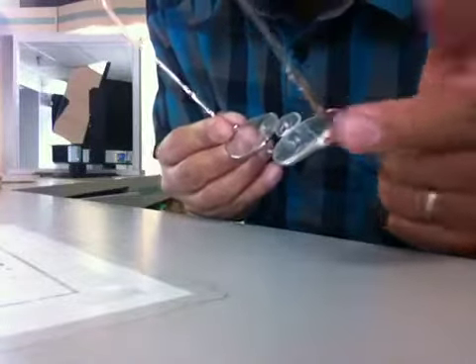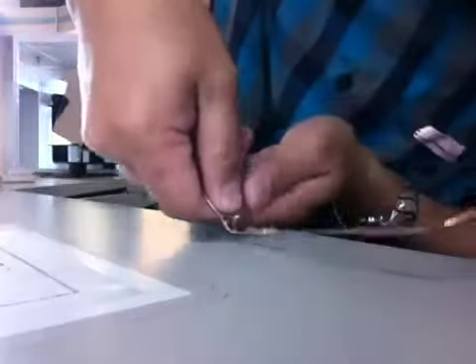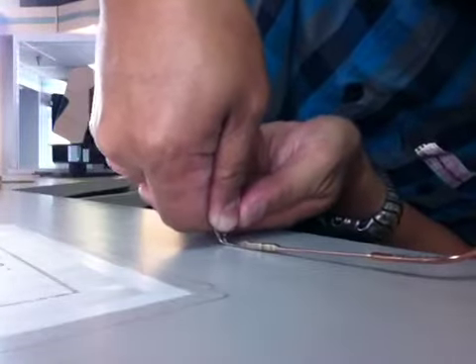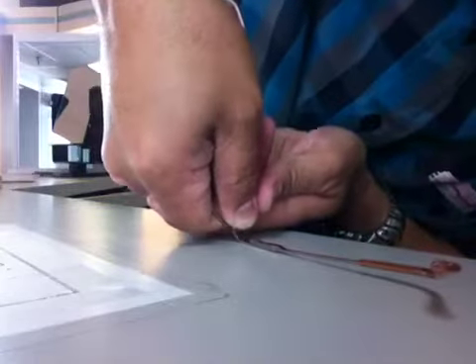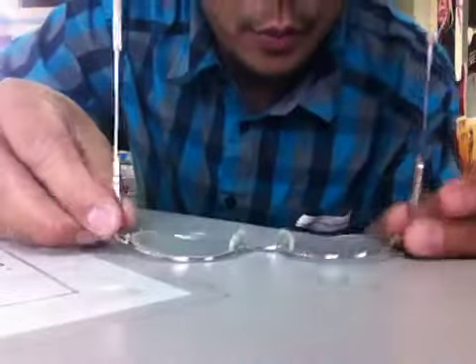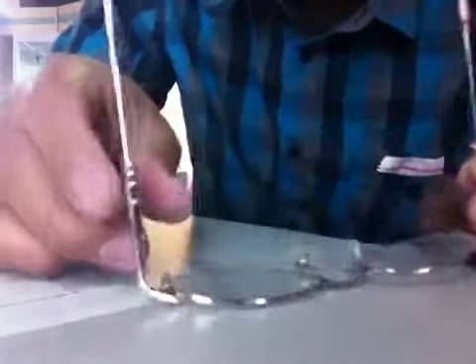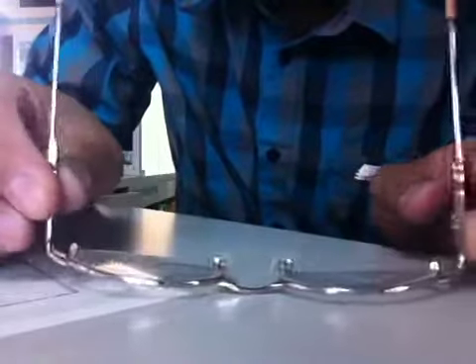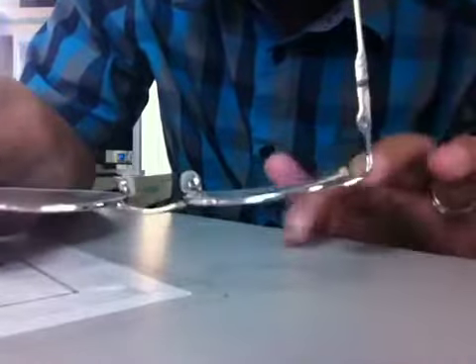You have to push this side like this, and then on the other side. See, now it's not loose anymore, it's not wide. Simple as that — you don't use tools, just use a table.